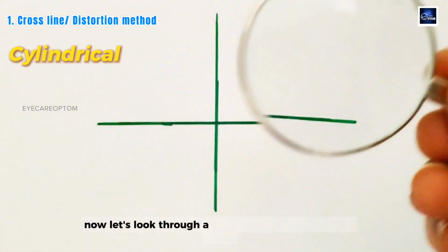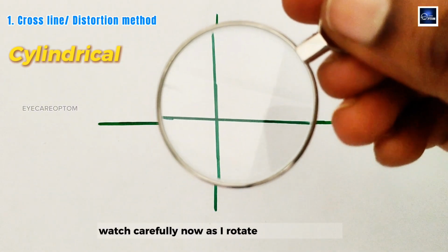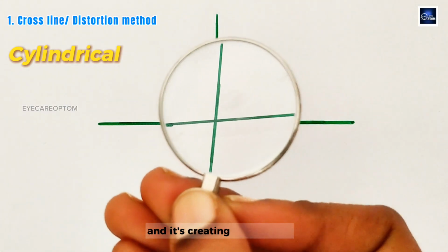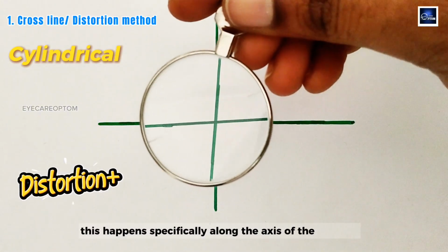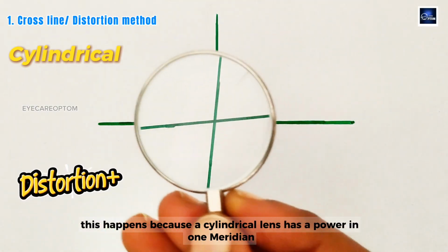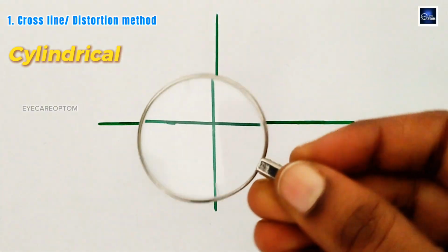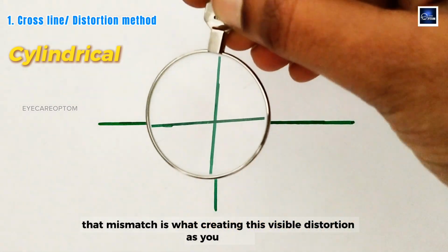Now let's look through a cylindrical lens at the same target. Watch carefully now as I rotate. At certain angles, one of the lines appears to tilt or break or separate from the other, creating a distortion. This happens specifically along the axis of the cylinder. This happens because a cylindrical lens has power in one meridian and the other meridian has no power. So one direction focuses light and the other does not. That mismatch is what creates this visible distortion as you rotate.